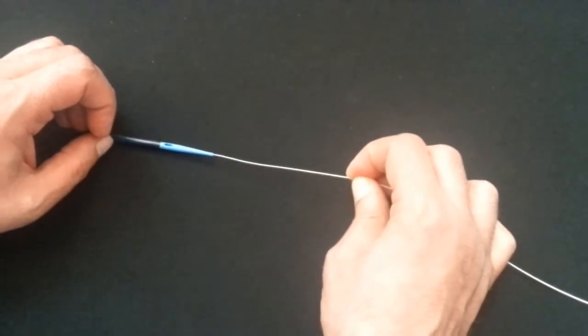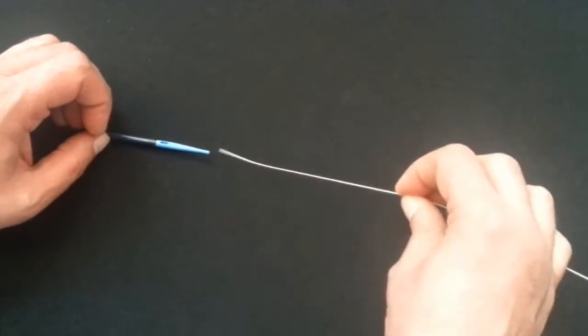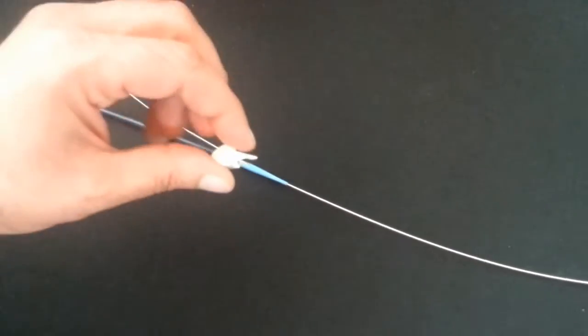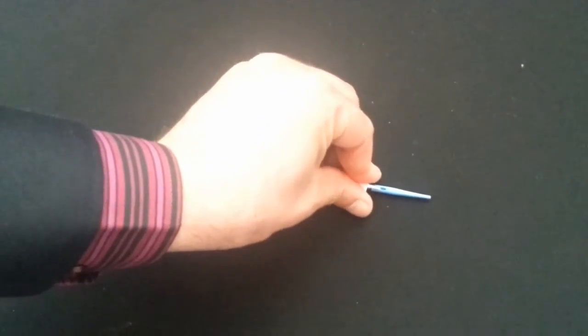However, to backload the guide in the tapered dilator is difficult. The use of the backloading clip is necessary.